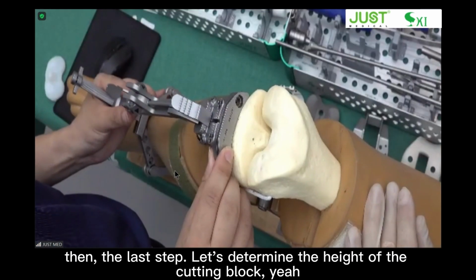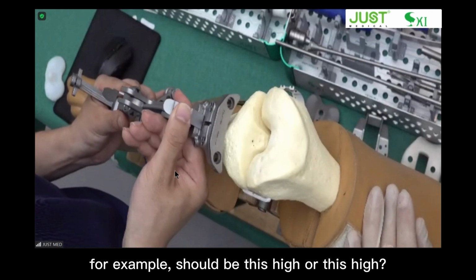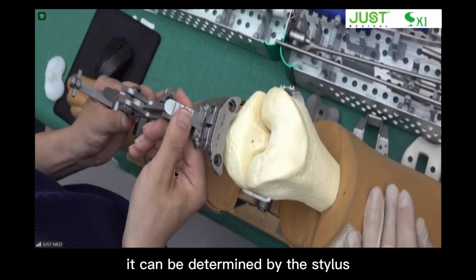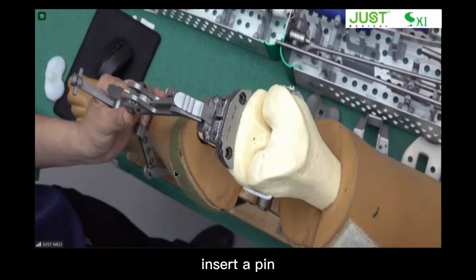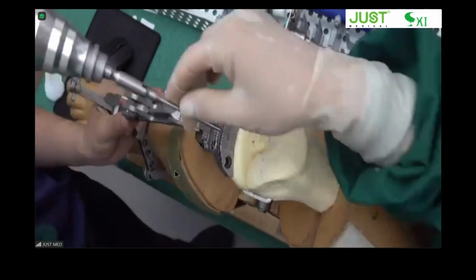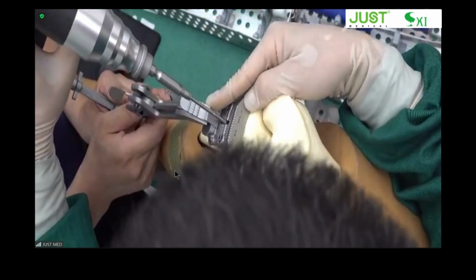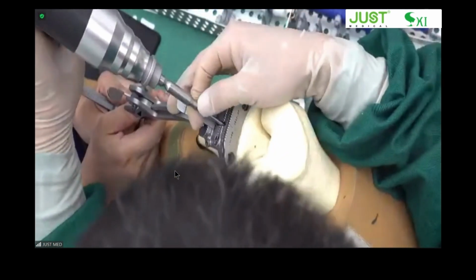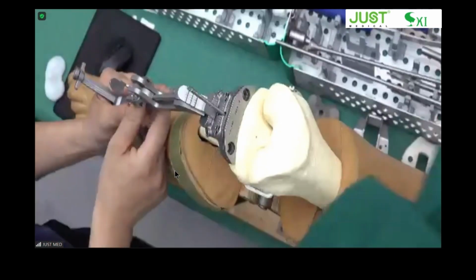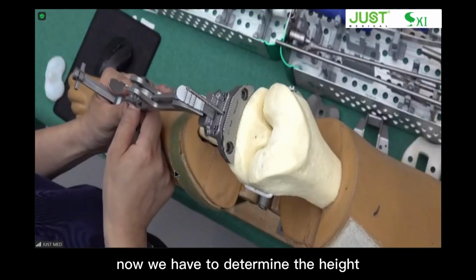Then the last step, let's determine the height of the cutting block. For example, should it be this height or this height? It can be determined by the stylus. Before that, we need to make a screw here. Insert a pin. Okay. Now we have to determine the height.